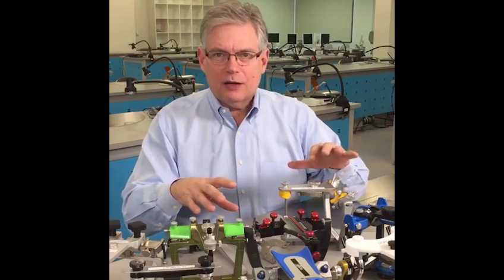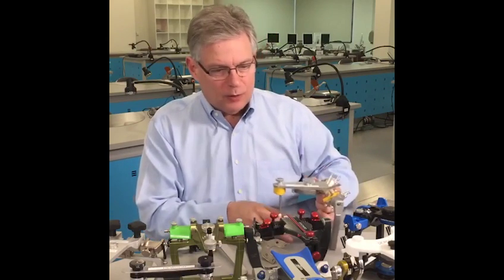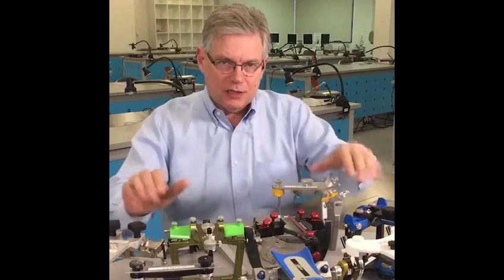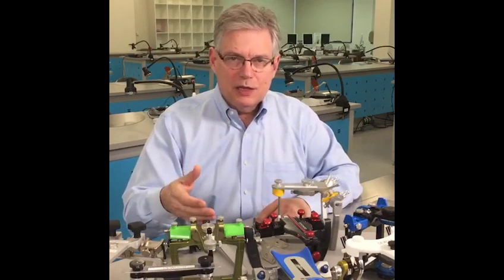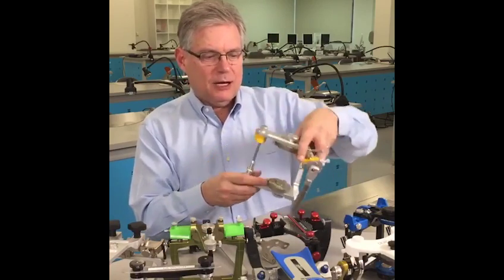Any semi-adjustable articulator works great. The one that I'm going to talk about is the SAM, although I will tell you I have used every one of these articulators working with patients, and they all produce great results. We teach with the SAM, so let's talk about the SAM articulator.